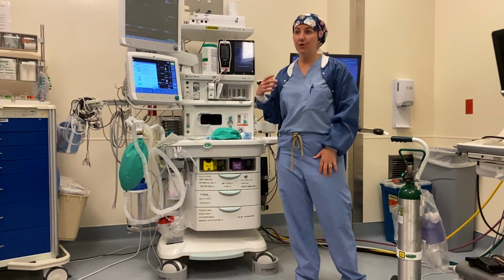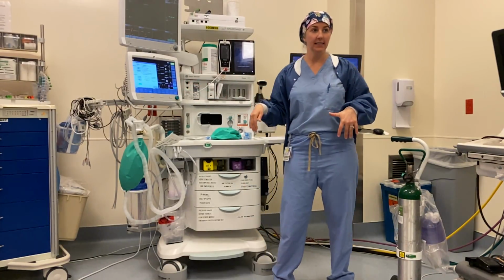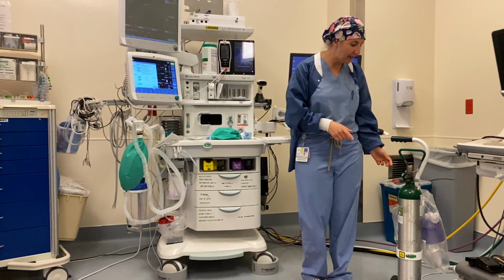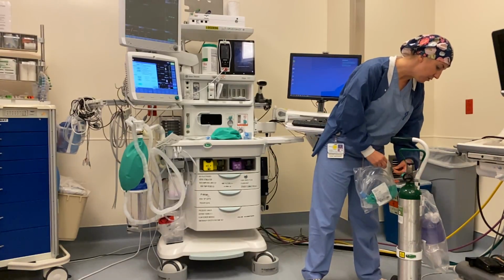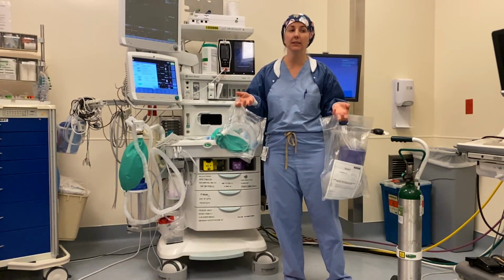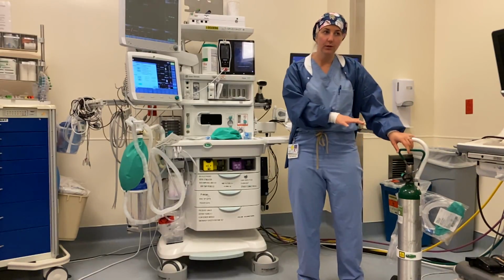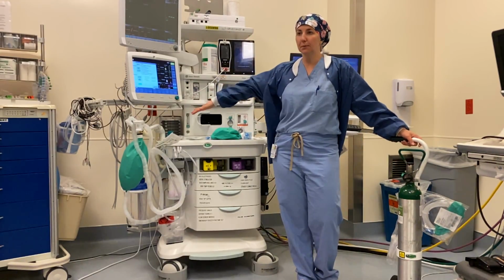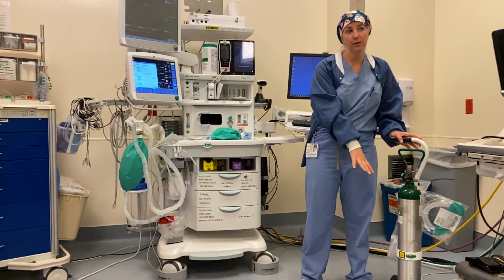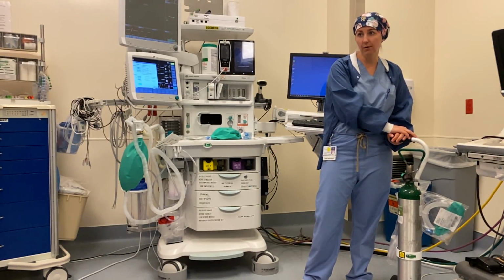There are usually one to two oxygen tanks somewhere near, adjacent to the anesthesia machine because we always have a backup. Find it and pull it out, and then the next thing I want you to do is attach whatever bag system you are most comfortable with, either the Ambu bag or the Jackson Reese, whatever you're used to. Having this out and ready is kind of like your security blanket. If everything over here breaks or doesn't want to work for whatever reason, you know how to bag a patient. You can do this with your eyes closed and your hand behind your back. So have it out and ready so you can use it if you need to, okay?